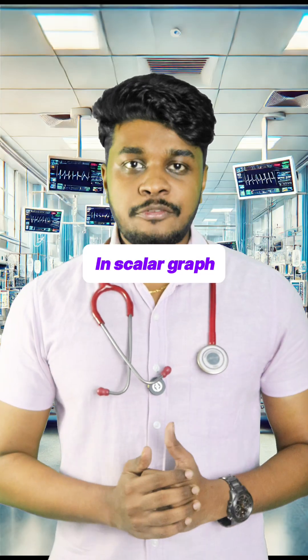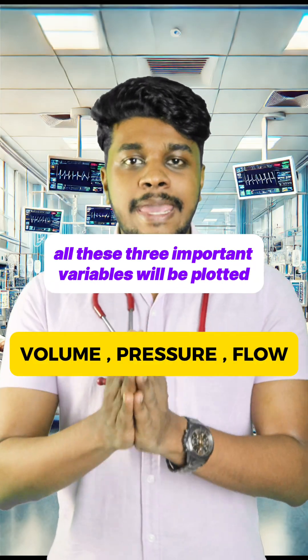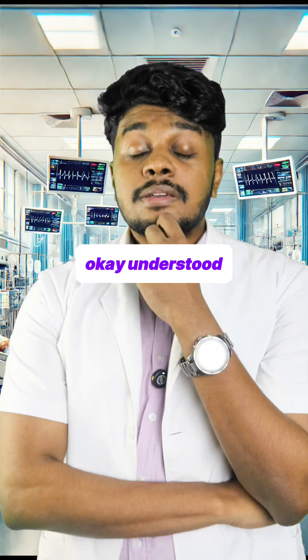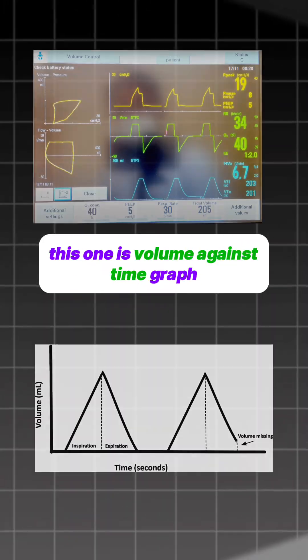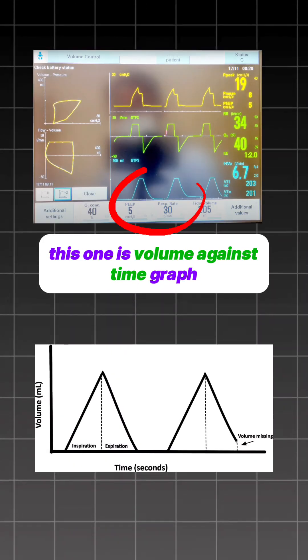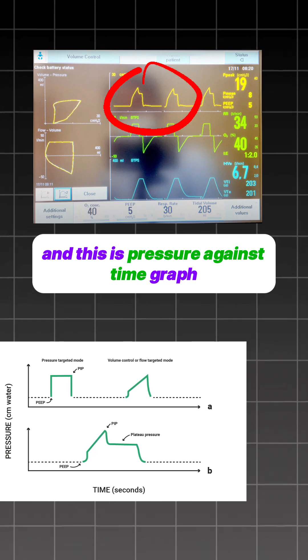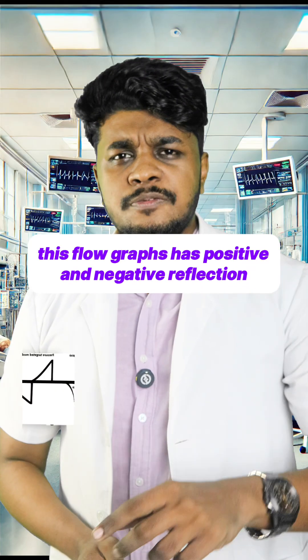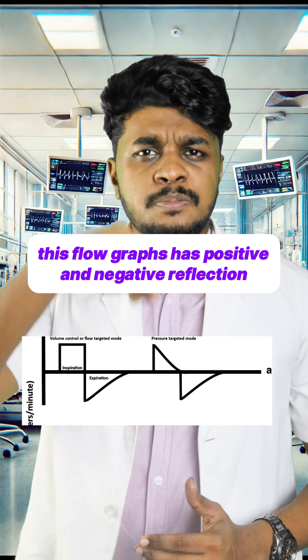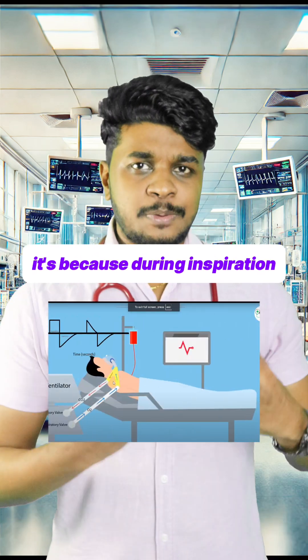There are two types of graphs in ventilator: one is the scalar graph and another one is the loop graph. In a scalar graph, all three important variables are plotted against time. If you look at the ventilator, this one is the volume against time graph, this is the pressure against time graph, and this is the flow against time graph.